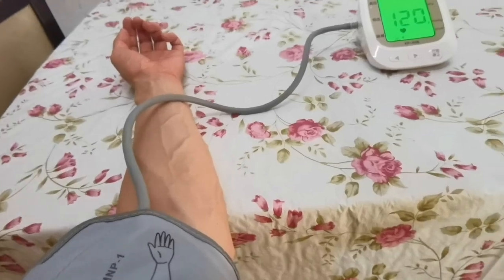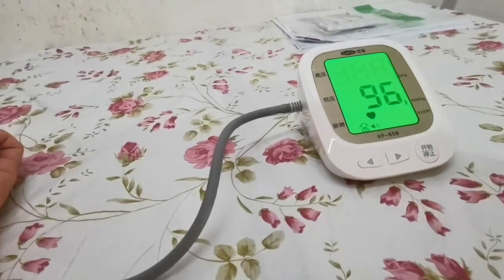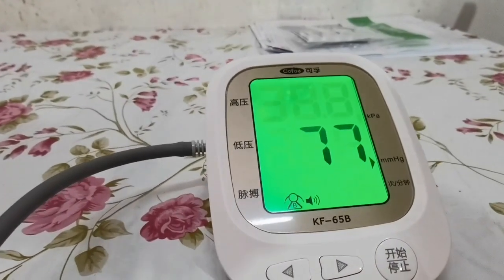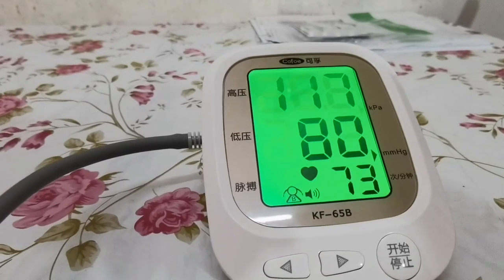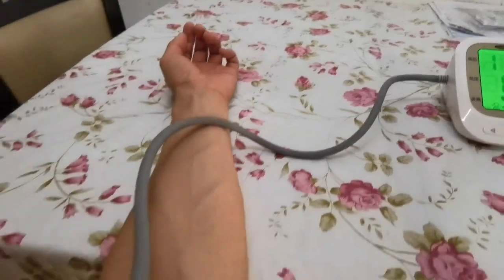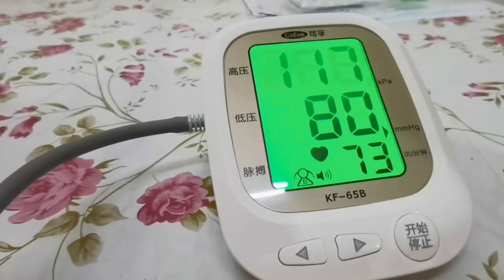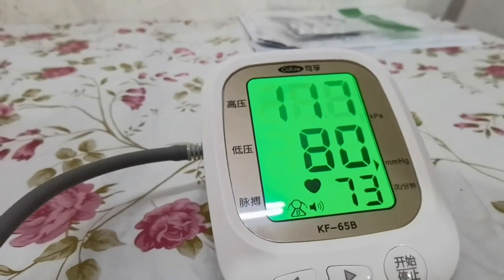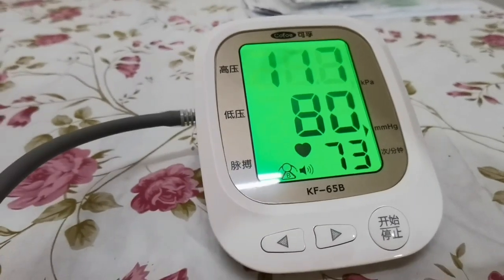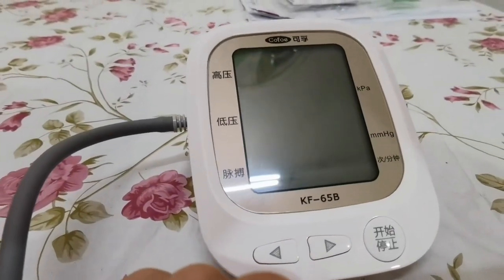I'm using this new Chinese one, which is much better, more accurate, and supports Chinese products. I'm happy to throw Japanese products in the rubbish bin. I support my own country's devices — it's very cheap, under 100 RMB, around 10 USD.